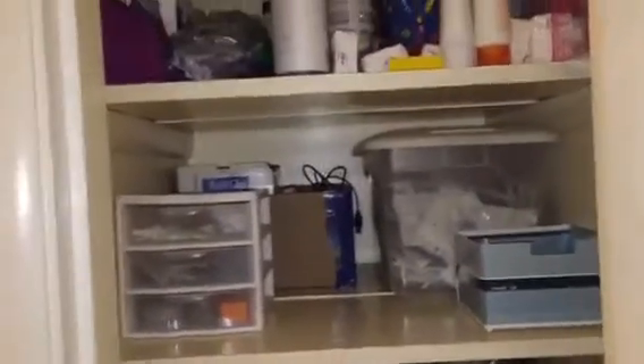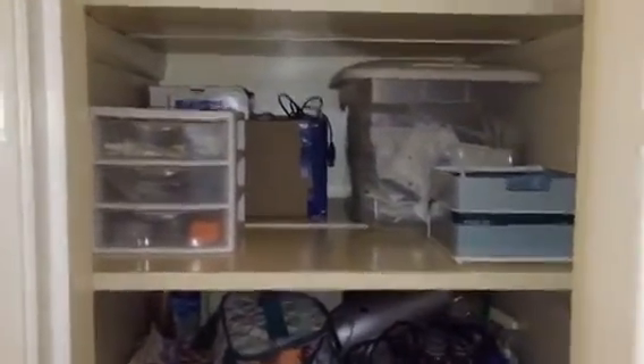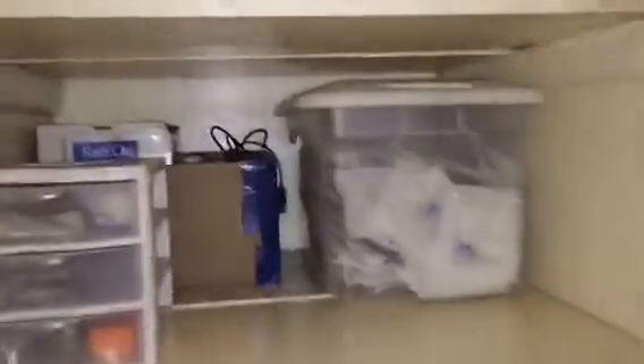The flash on my phone is on, but this is the first place that I keep supplies. This is not insets — I actually need to throw this away because this stuff doesn't work with my new pump. But yeah, this is the first area. So in this huge tub I have all of my tubing from the years I've had my insulin pump, and there's a lot of it. And then back here I just honestly have random stuff — a bunch of syringes, a bunch of cords, old stuff, random diabetes supplies, glucagon, stuff like that.